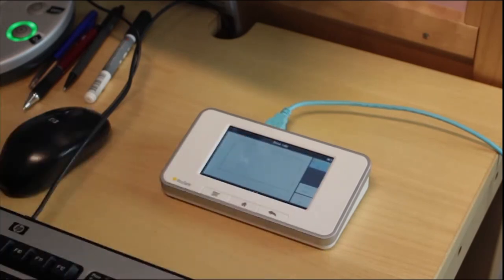We have a look at the waveform. We only have the main exposure and no pre-pulse.